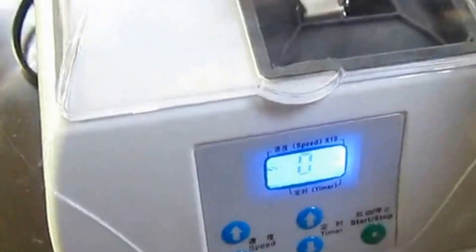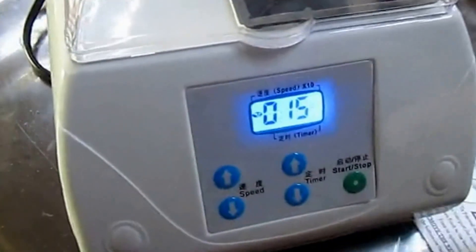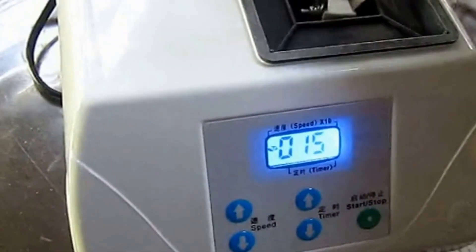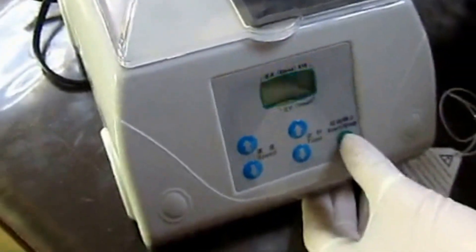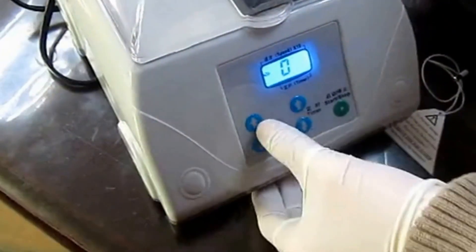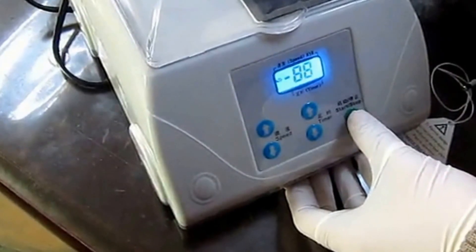When finished, turn off the rear switch, then turn it on again. While it is set to O, open the mask and the device will stop. With the mask closed and set to U, the device can work continually.